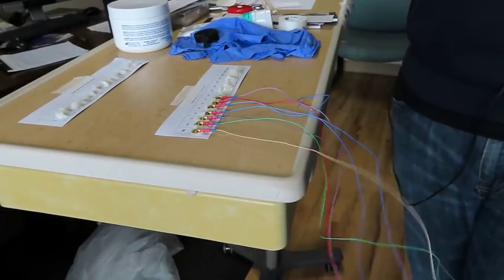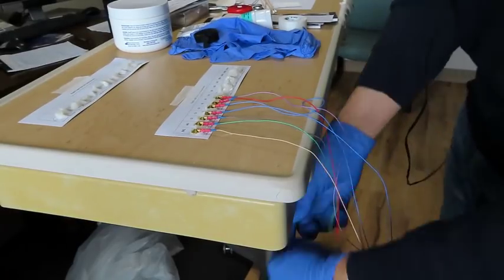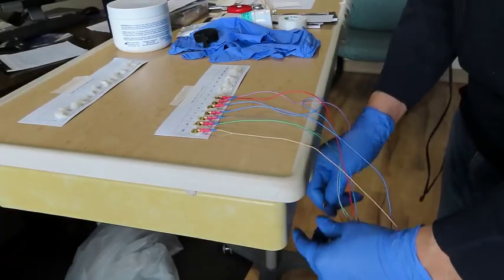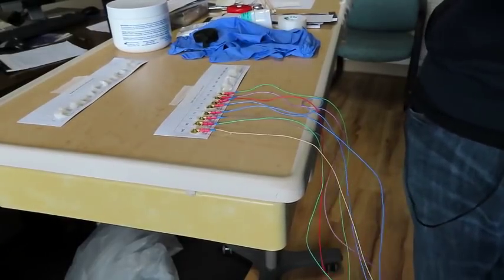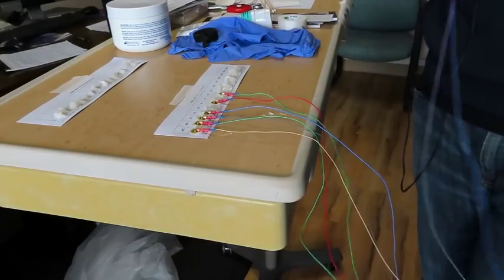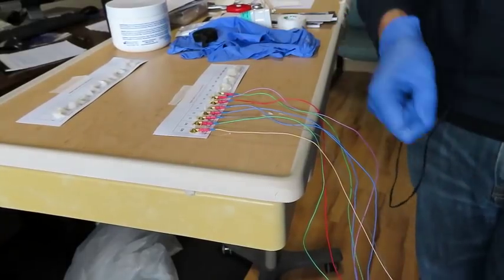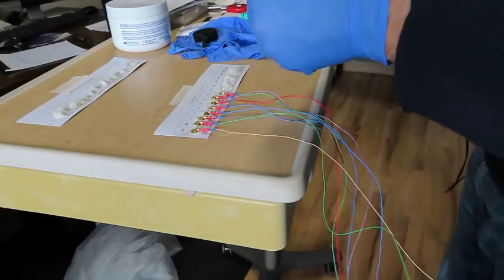That's that one there. And again, what I'm doing now is just grabbing one wire at a time, and of course they always tend to tangle up a little bit, but let me just reverse that. So grab it here, go underneath all the wires to the side, put the palette on. Oh, pulled one off just to focus on the camera here. And let's see, that one goes there. Okay, this one here, right underneath.